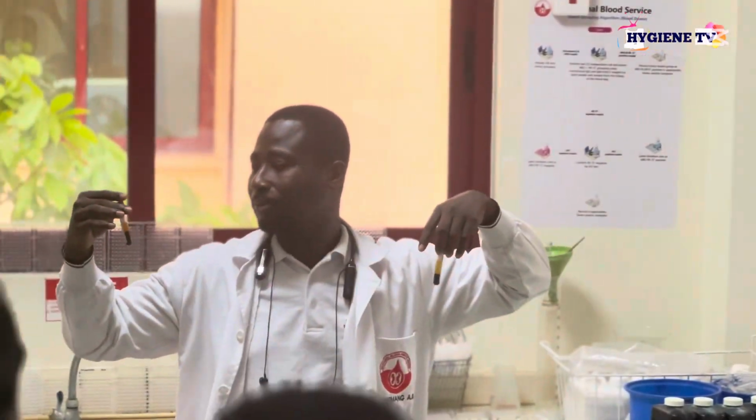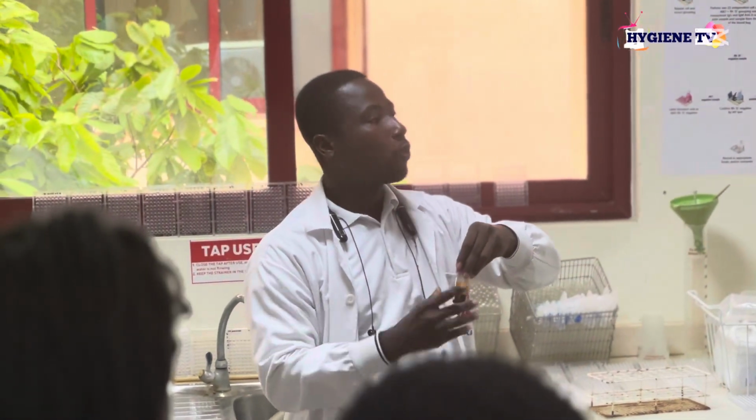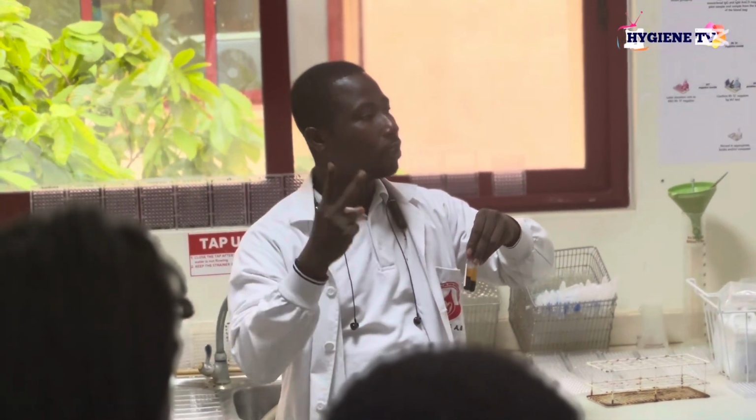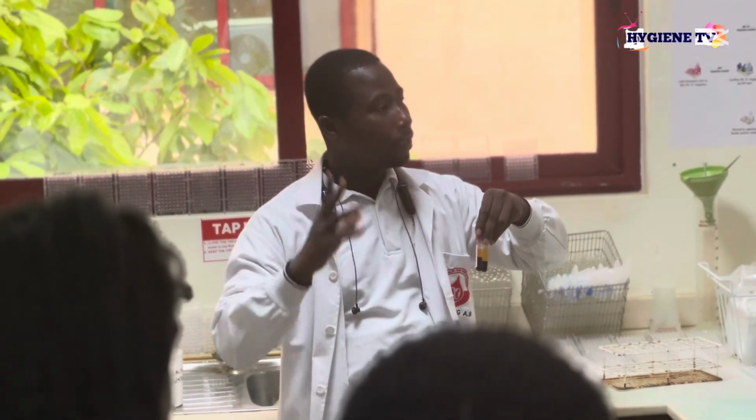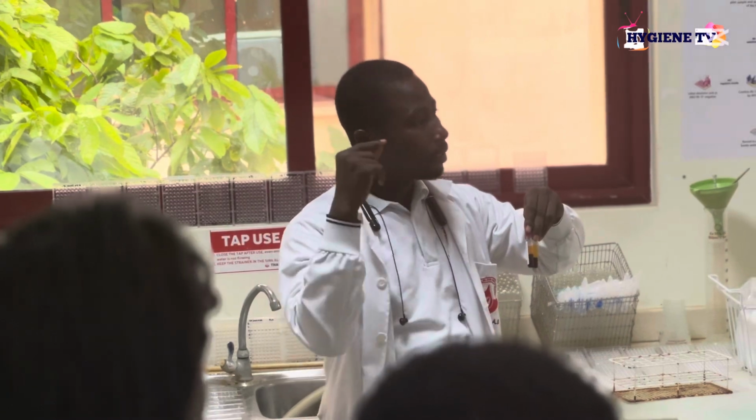Okay, good. Now, when you collect the blood from the fridge, the first thing you should check is the plasma. If the plasma is cloudy, looks hemolyzed, or is too turbid, it should prompt you that something is occurring in this particular blood.